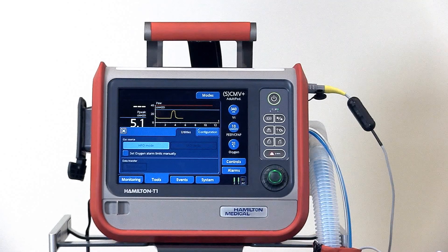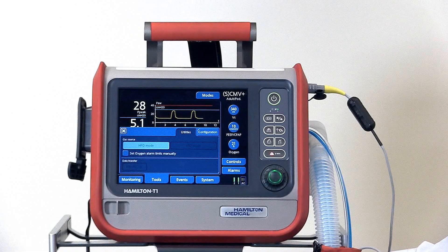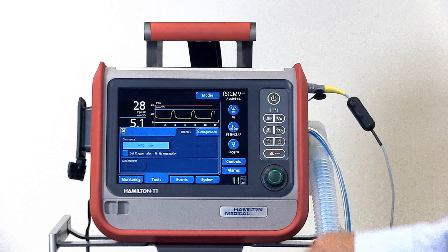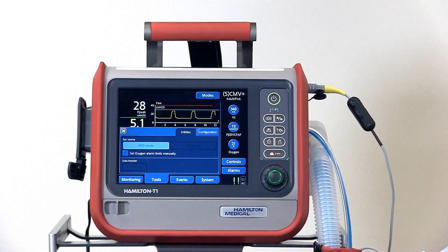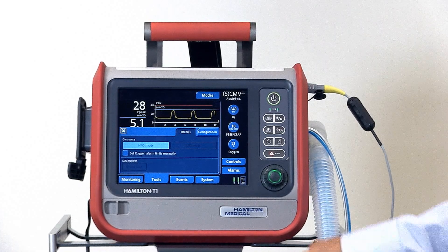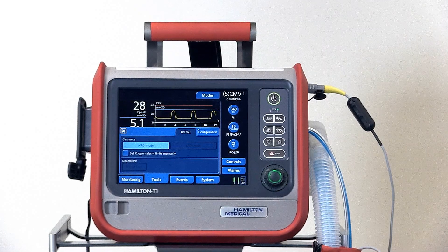The next tab over is the Tools tab where you can select between high-pressure oxygen and low-pressure oxygen. You do have to be in standby to switch to low-pressure oxygen, and the maximum flow for low-pressure oxygen will be 15 liters per minute. You can also choose to set the alarm limits for oxygen manually.